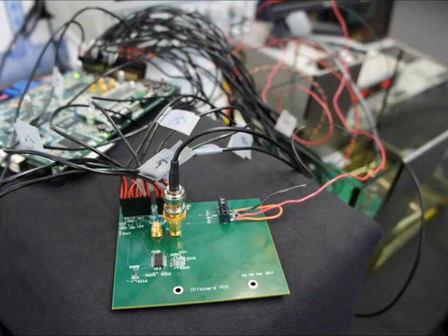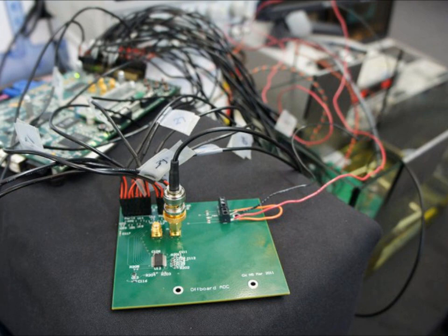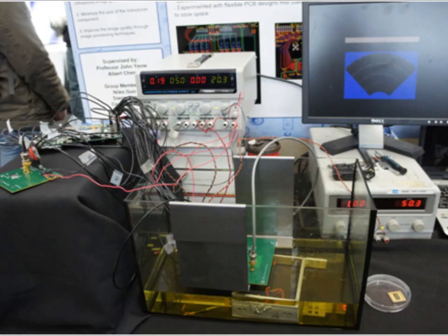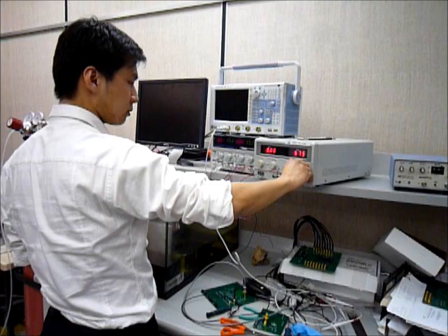Here is the analog-to-digital converter that interfaces the analog signals with digital signals so we can produce an image on the screen. The setup here is our functional prototype that we built to show a proof of concept of the research. Now I would like to show you our experiment.